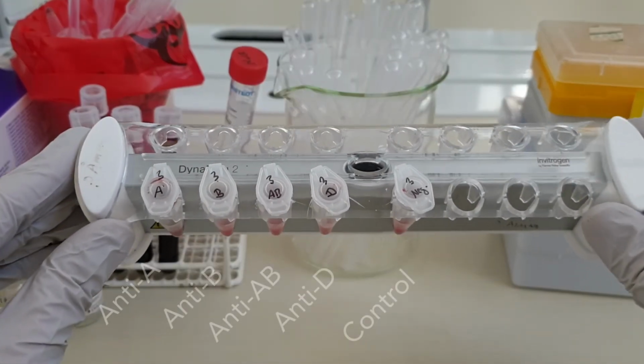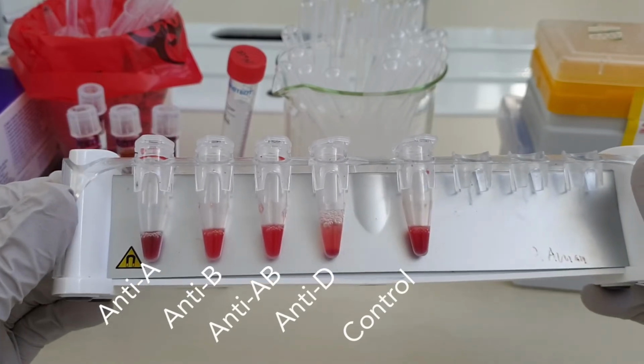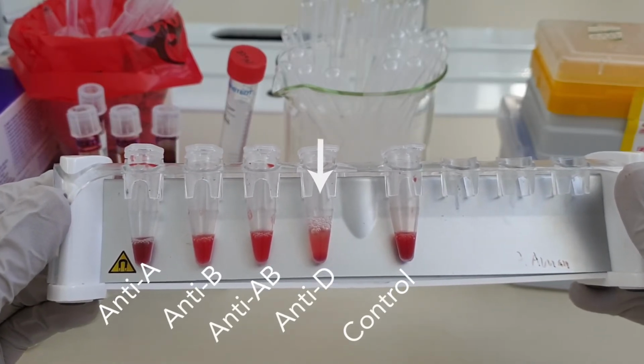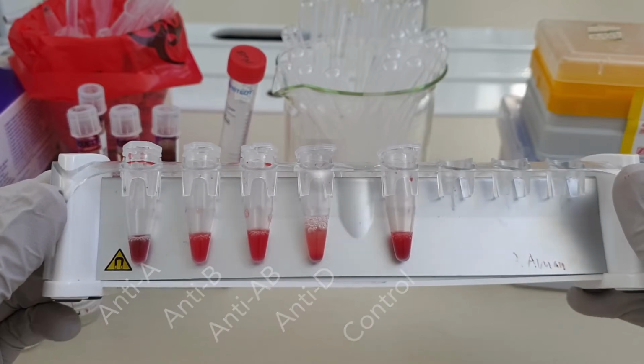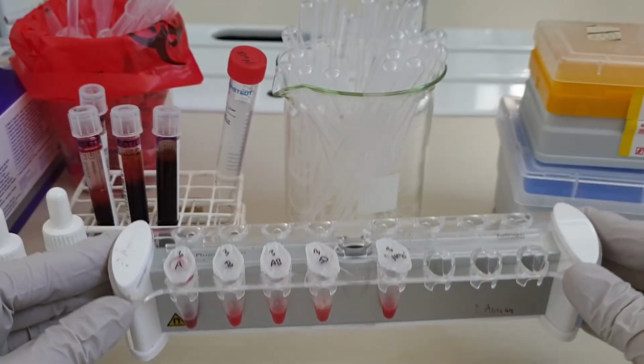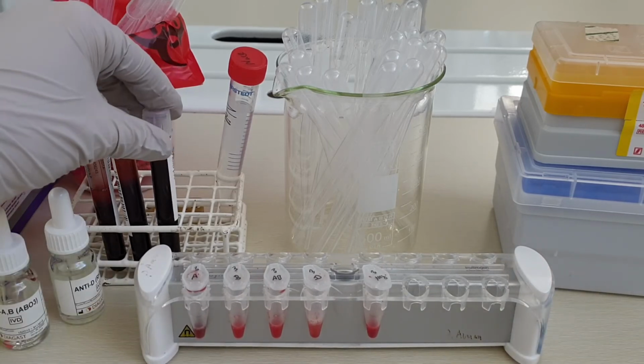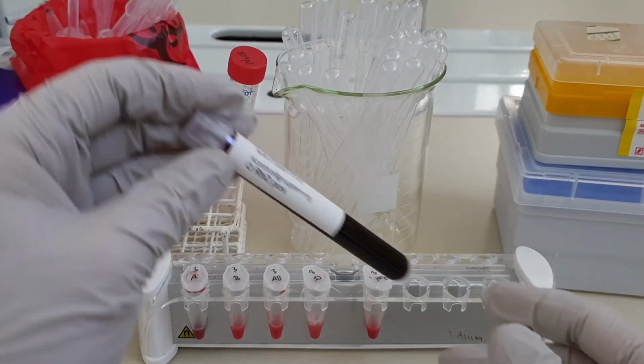And there's the third sample. This time we've only got agglutination against anti-D, so this donor was type O positive. We can check again on the blood tube, and indeed, O positive.